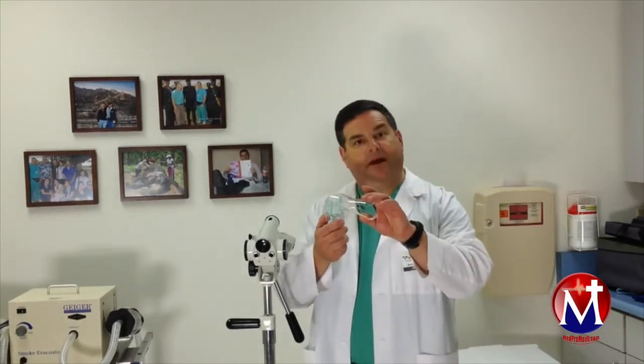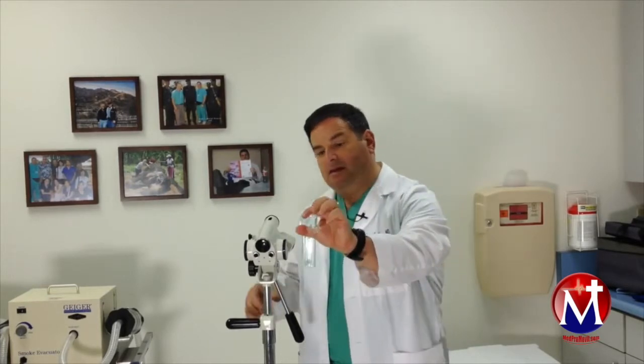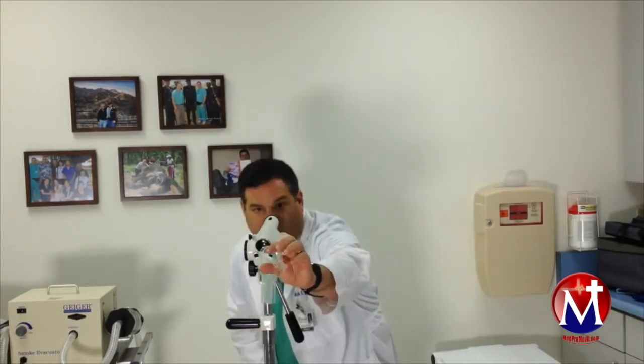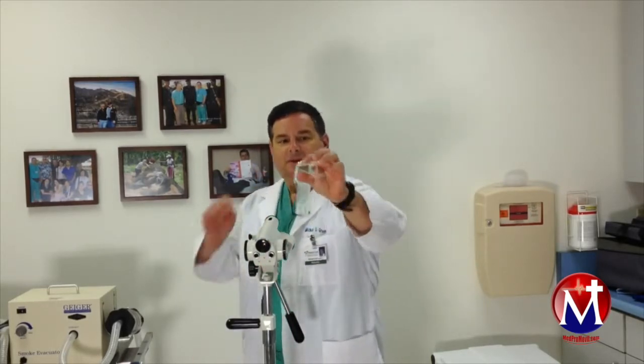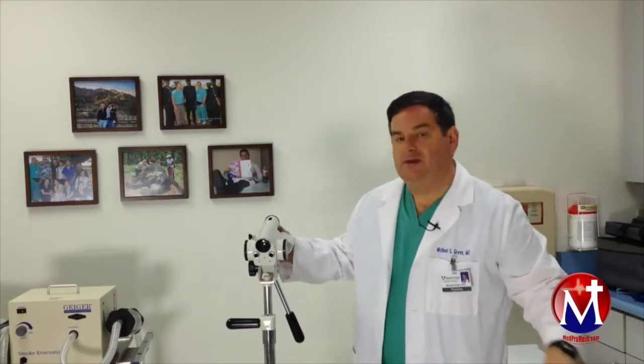What we do with a colposcopy is we put a speculum in, just like for a pap smear, and that's placed in the vagina. Then the doctor will come and look through the microscope through the speculum so that the doctor can see the cervix really close up.